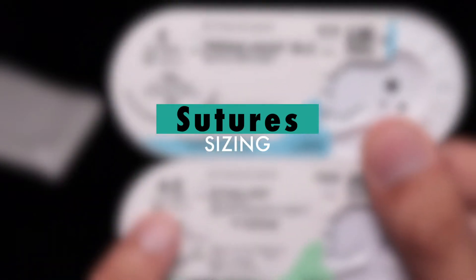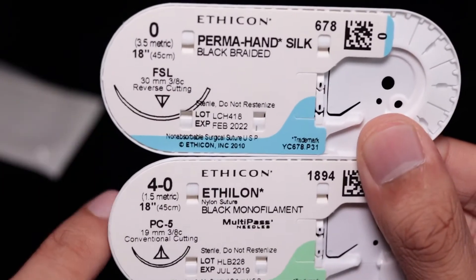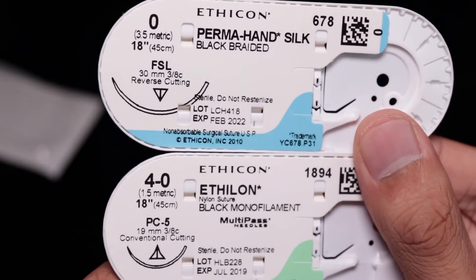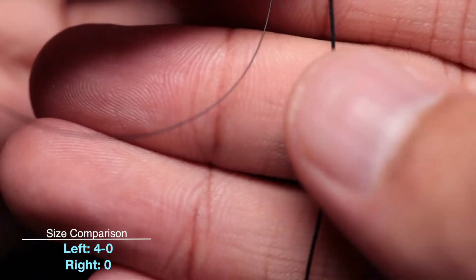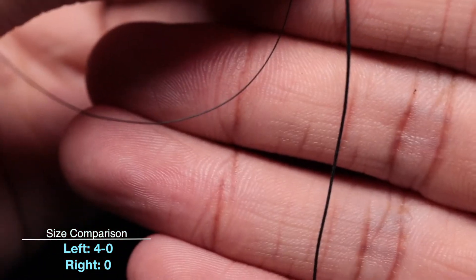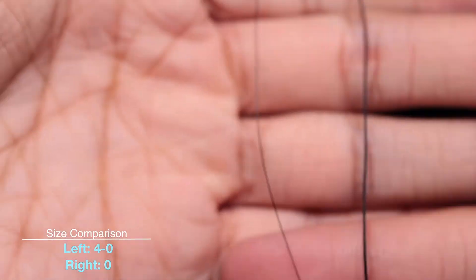Sizing is counter-intuitive. Sutures range from 10-0 to size 7, where 7 is the largest and 10-0 is the smallest. So going from 10-0, 9-0, 8-0 — as you go down, the sutures are actually getting bigger. Common ones you will hear are in the range of 4-0 to 0 or 1 type suture.